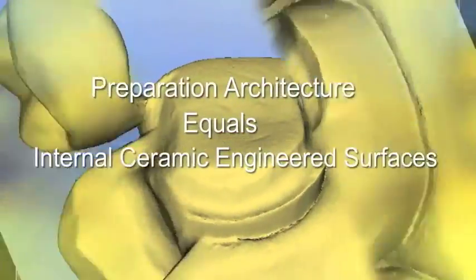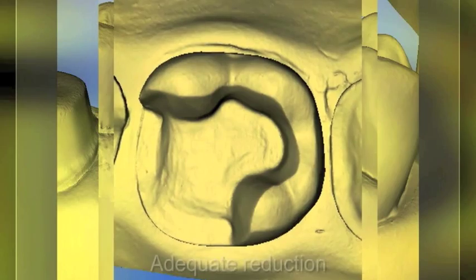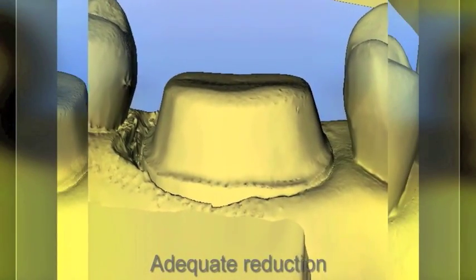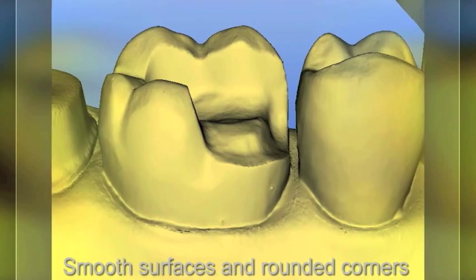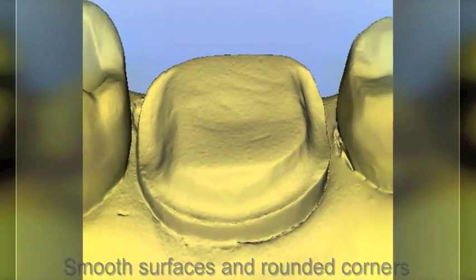When you prepare, you want to prepare your preparations for the type of ceramics that you're going to place. You need to know your metric system for thickness. You want smooth flowing margins and smooth flowing internal surfaces. You don't want any sharp areas, so you don't create weak areas in your ceramic.